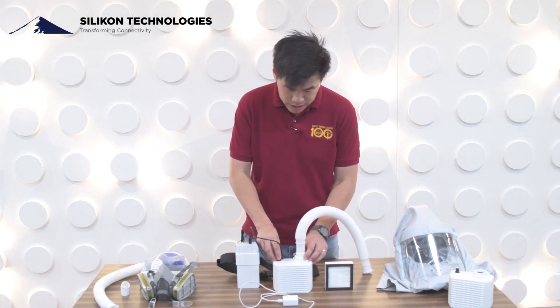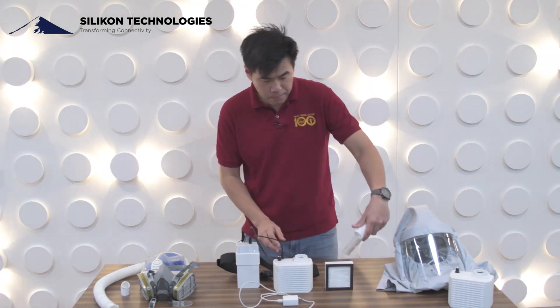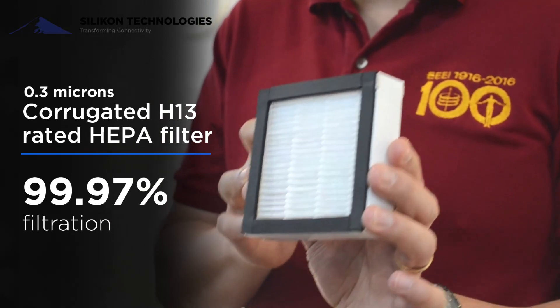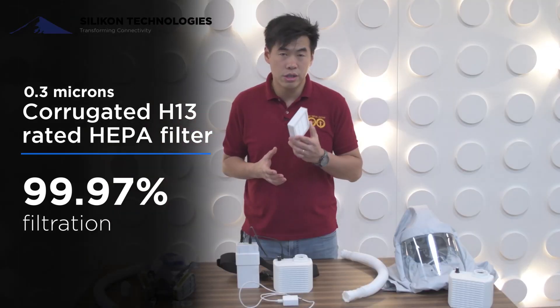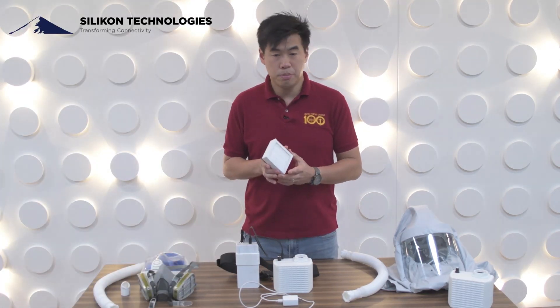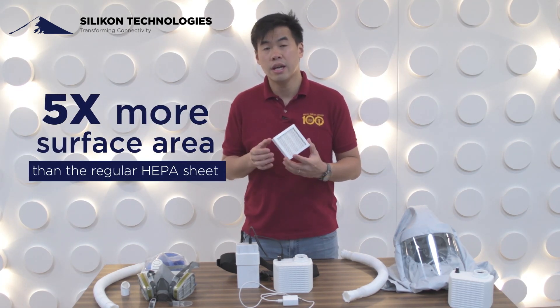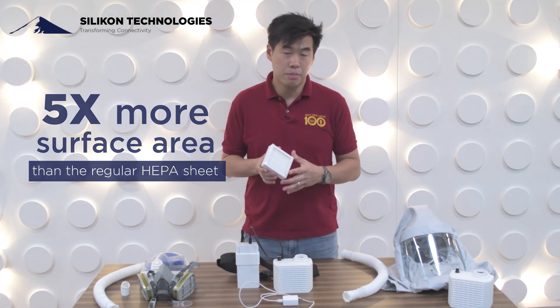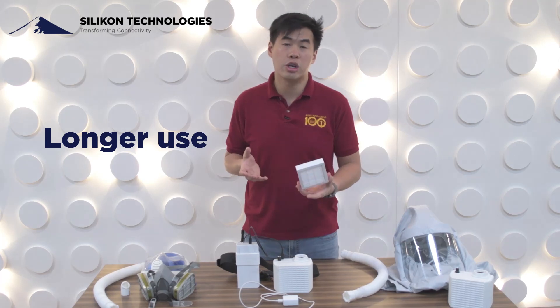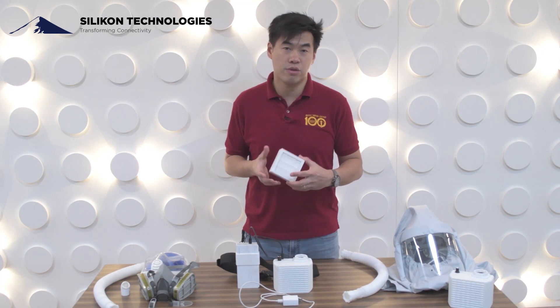What's inside the air filter air pump is an H13-rated 99.97% filtration, 0.3-micron corrugated HEPA filter. Because it's corrugated, the surface area is five times more than a regular HEPA sheet, so you can actually use it a lot longer. If a typical HEPA cartridge lasts for about a week, this one lasts for probably a month.